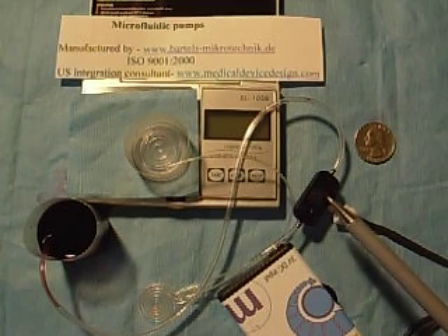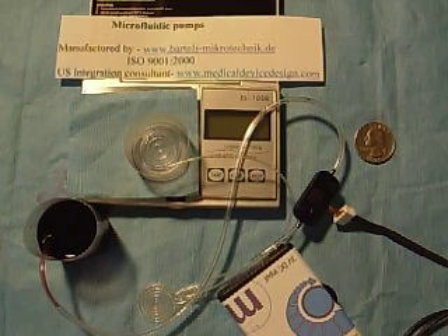Here's a pump here. This series of pump, the MP6, is geared toward numerous applications such as medical, biotech, and pharmaceutical. At less than three and a half euros per application, this pump offers some interesting possibilities.